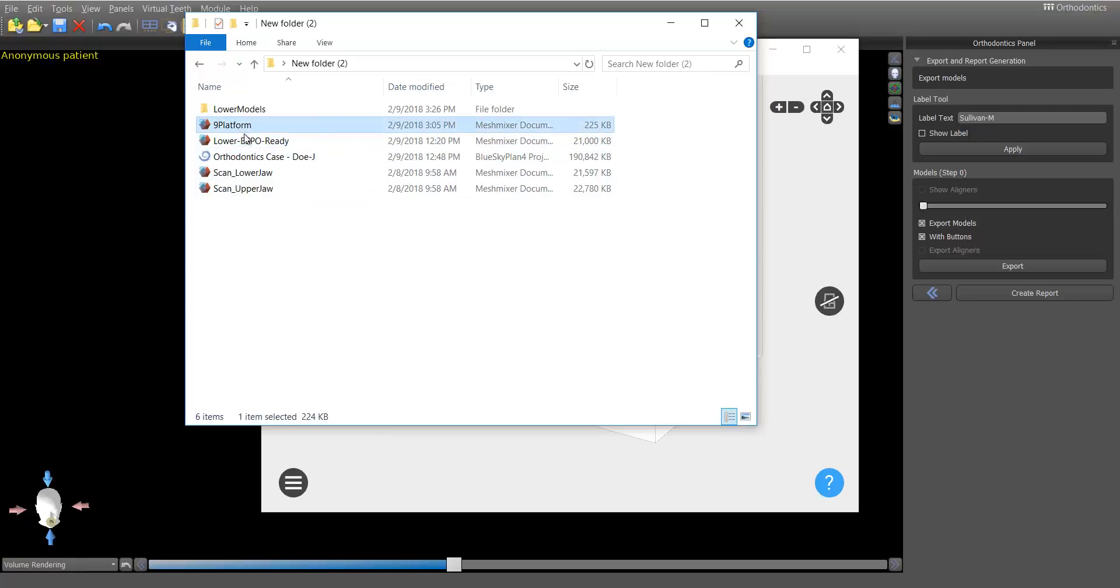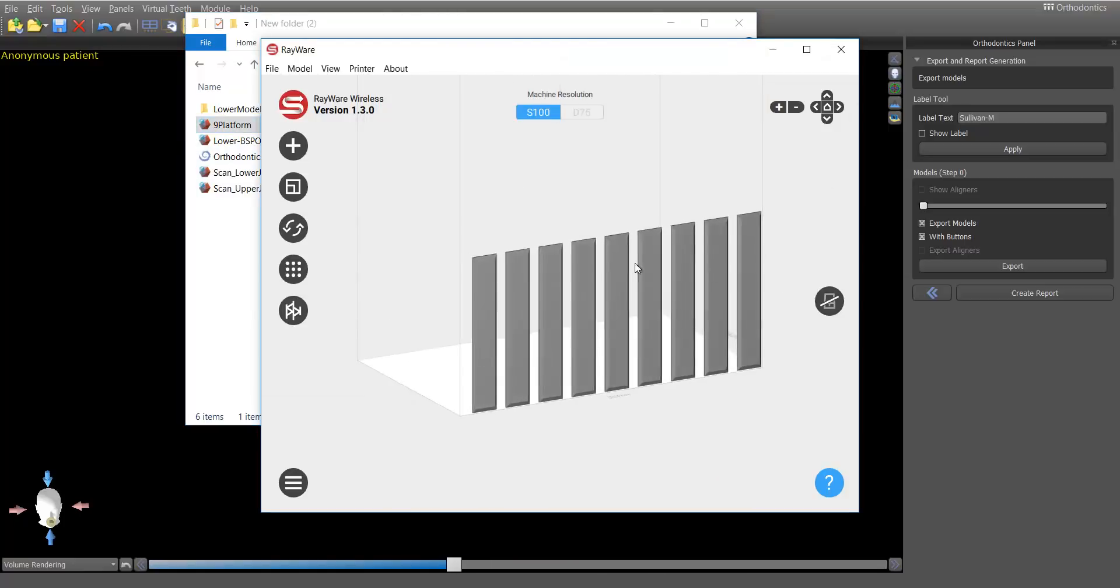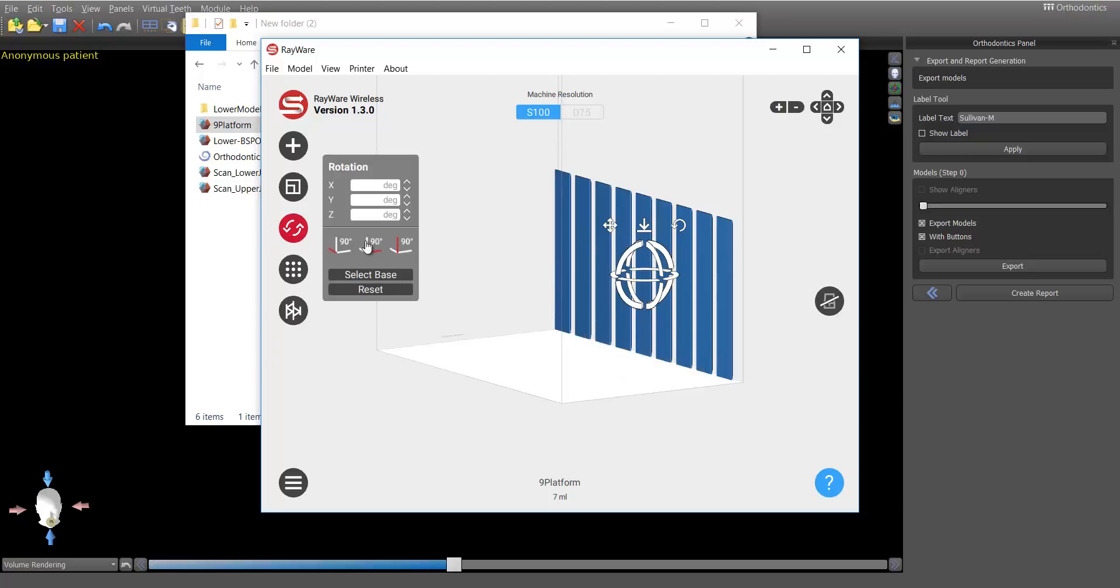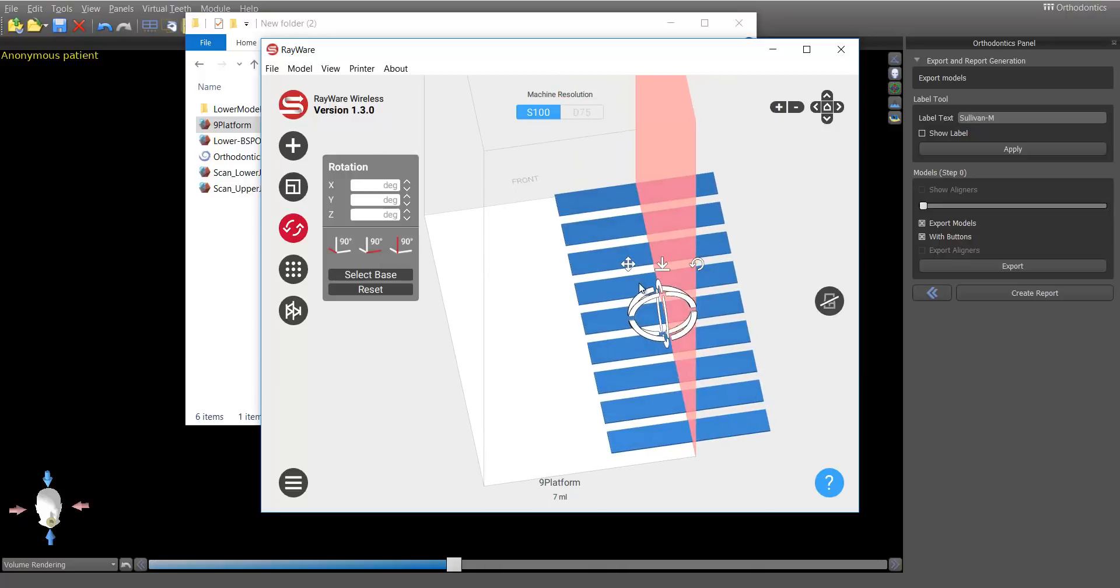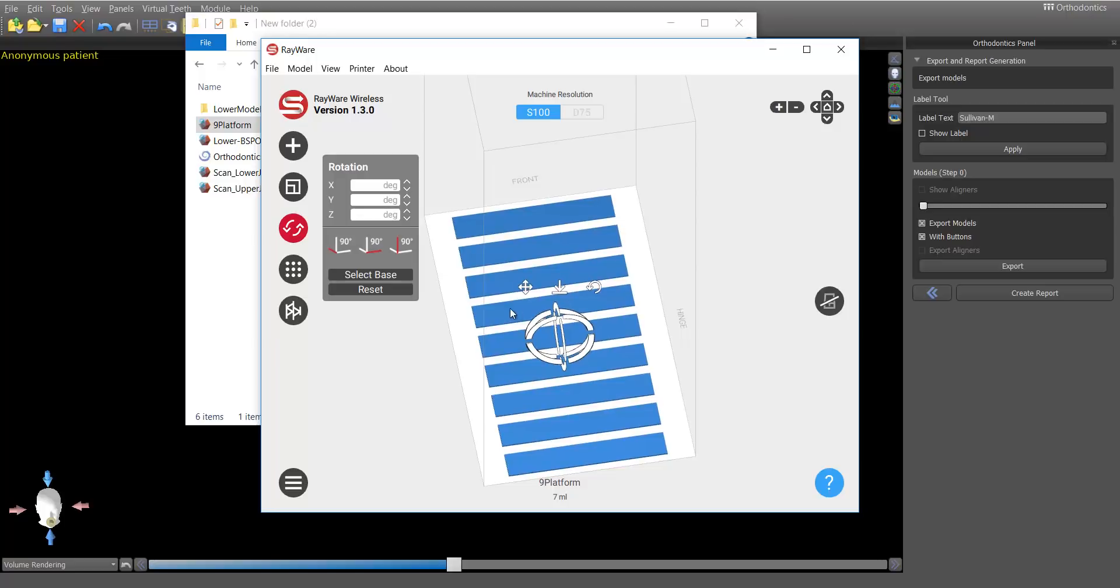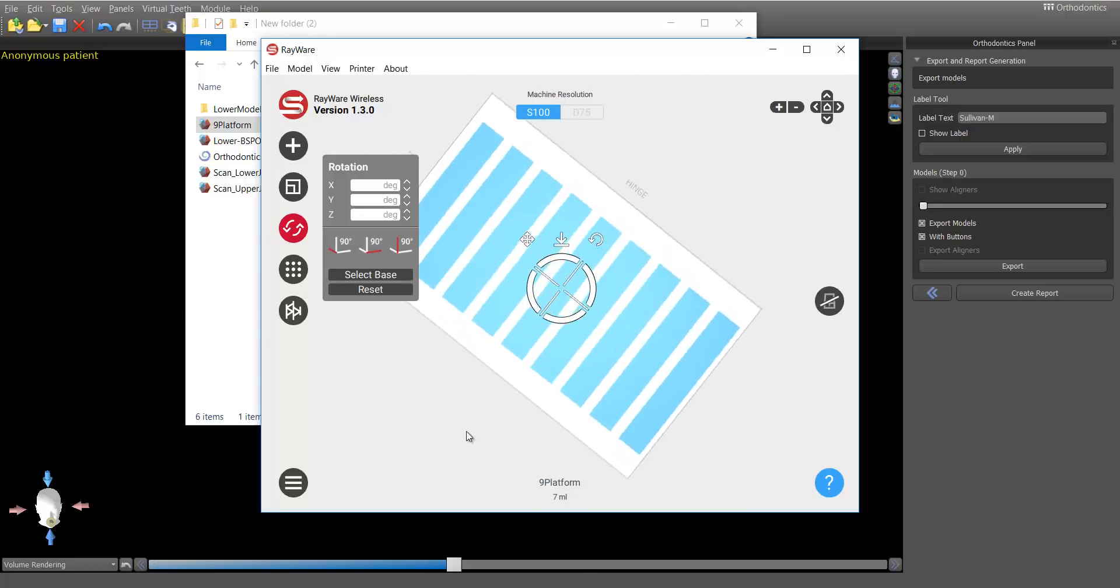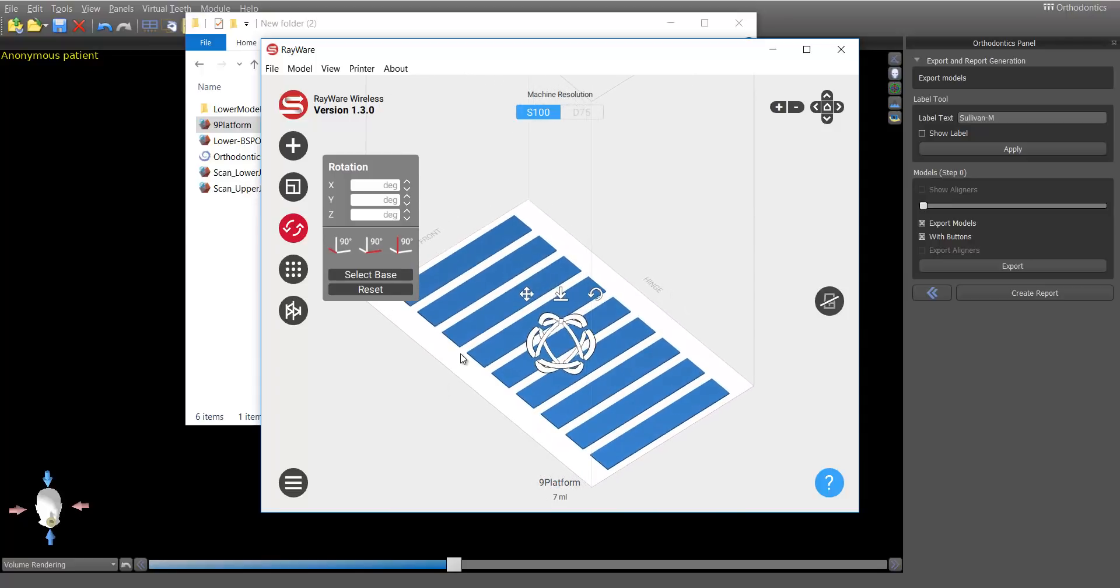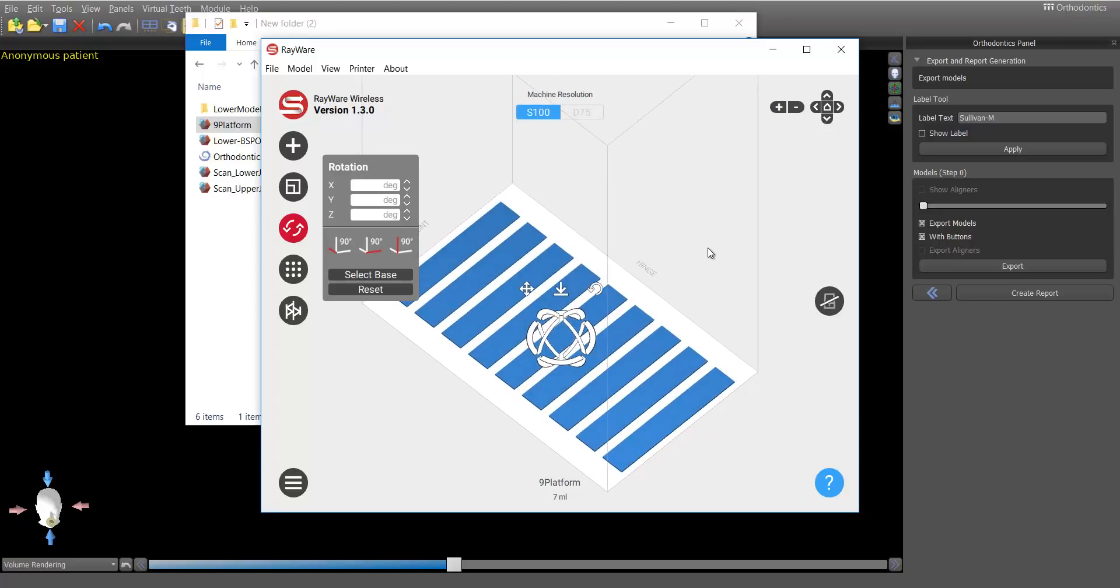So, in this folder that I created for this patient, I have this little file called 9platform. Now, this wouldn't normally be in this folder. I would keep it somewhere else because it's a universal file. But for this video demonstration, I've included it in the folder. So, what I'm going to do is, I'm going to drag and drop this into my Rayware software. And you see, all it is, is a collection of 9 of the platforms I created a while back, and you may have seen it in some of my other videos. First thing I'm going to do is I'm going to click on that. I'm going to click over here in this orientation, and I'm going to click once right in the middle of the Y-axis button. And then I'm going to center this right in the middle of the build platform. Now, I want to point out, this idea is not purely mine. I put my own little twist on it, but for the most part, Stephen Chow, Dr. Stephen Chow was the greatest influence to this. Also, I saw a similar note on this with Marco Tadros.